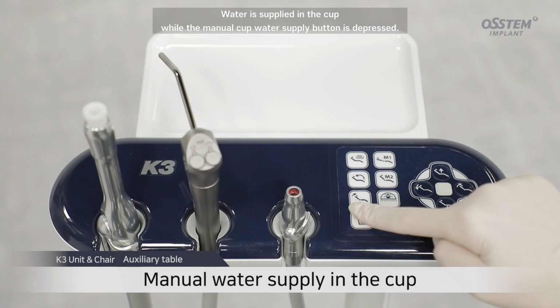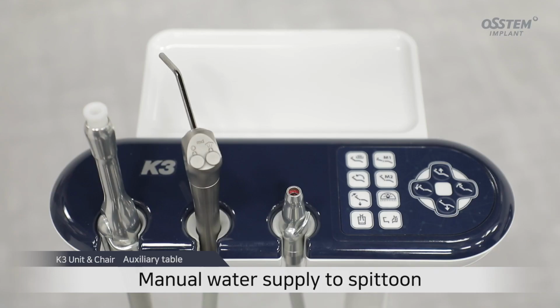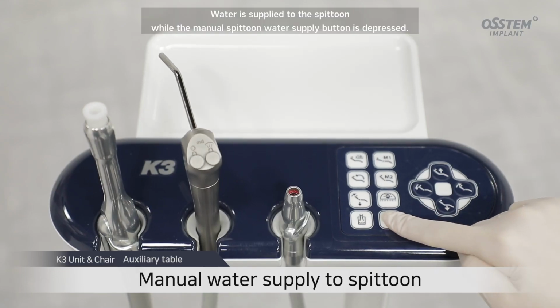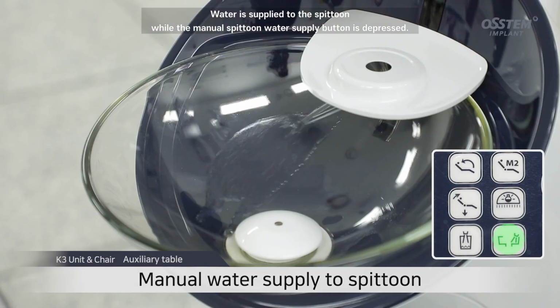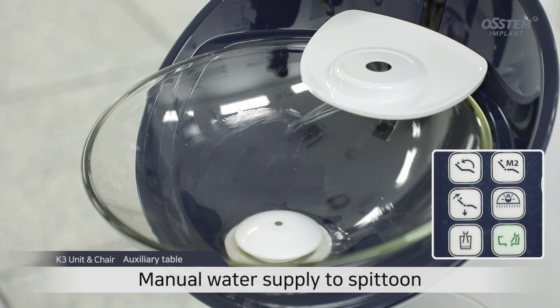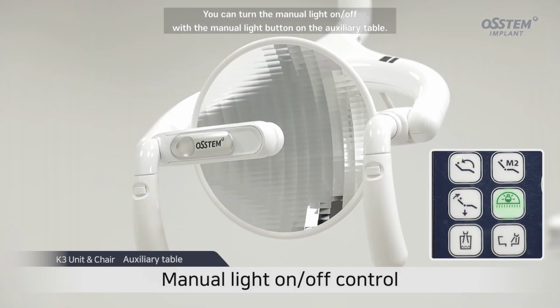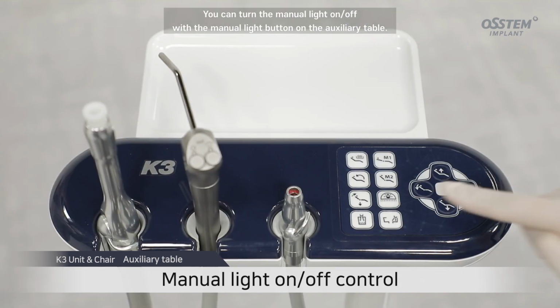Water is supplied to the cup while the manual cup water supply button is depressed. Water is supplied to the spittoon while the manual spittoon water supply button is depressed. You can turn the operating light on and off with the manual light button on the auxiliary table.